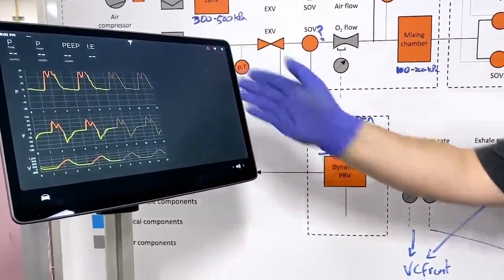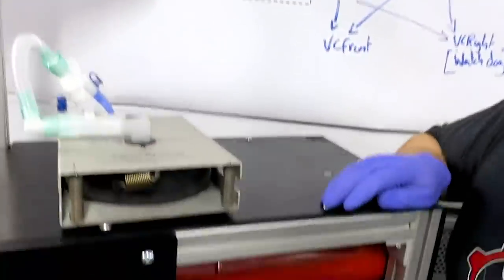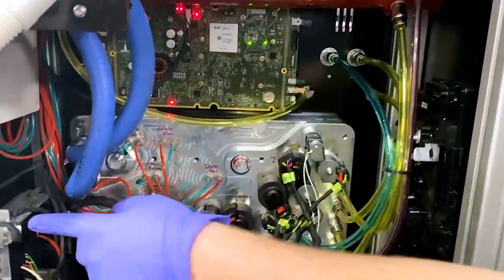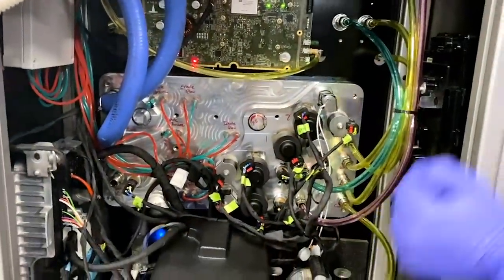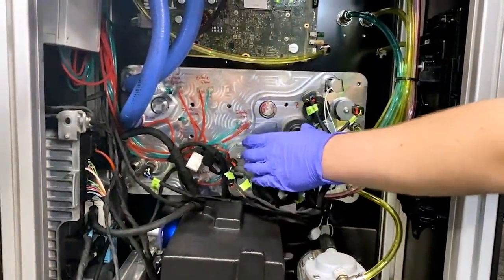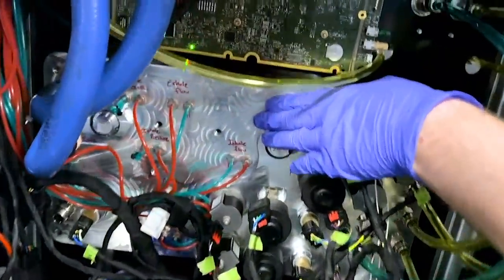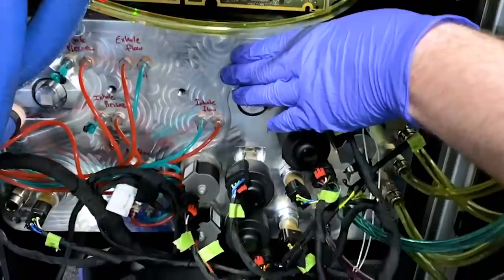This touchscreen is powered by the Model 3 infotainment computer in here which controls Model 3 vehicle controllers. These vehicle controllers talk to these precision variable valves on this single-piece manifold which we designed to be easy to put together.